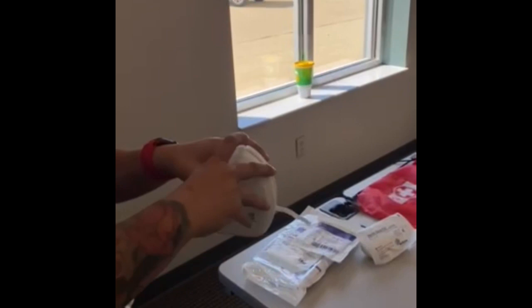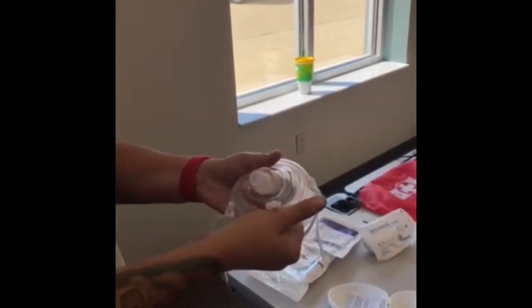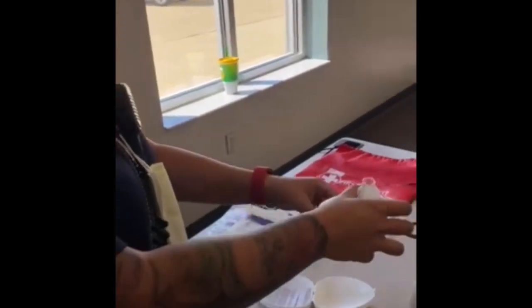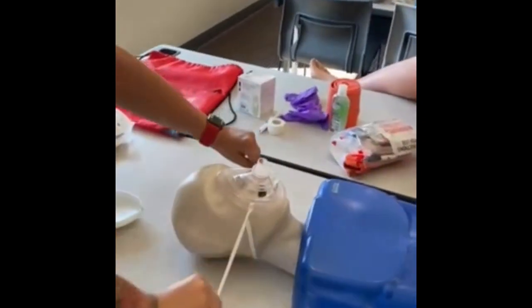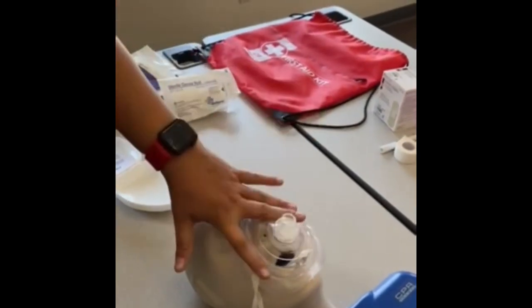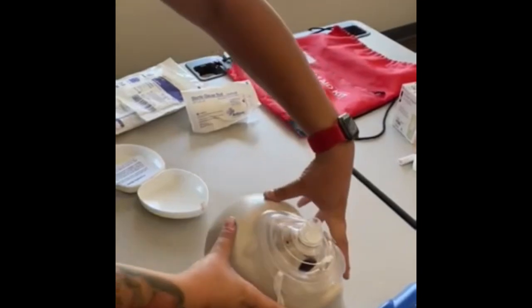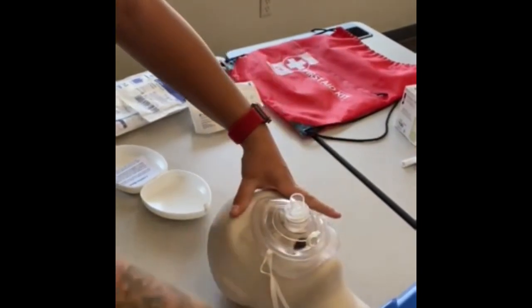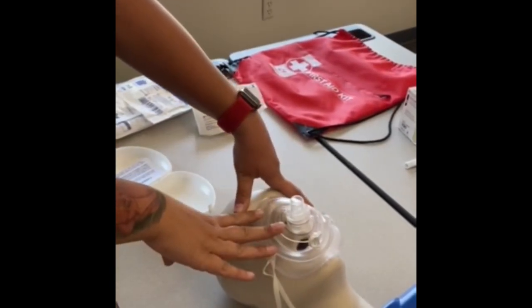Next, the CPR mask. Open it from the top and pop it out to its full shape. Place it right on the patient's face, put the strap around and tie it tight. That is where you put your mouth to give a breath. Tilt their head back to ensure most of the air goes into their lungs, and continue doing this while you wait for EMS to arrive.